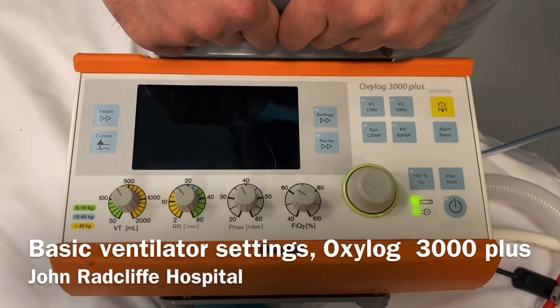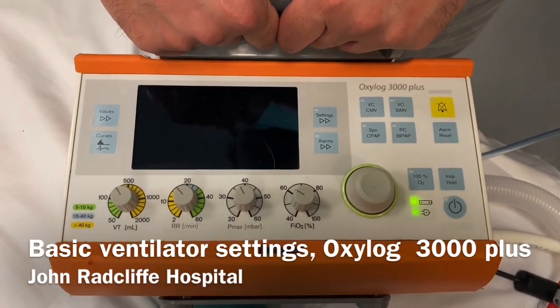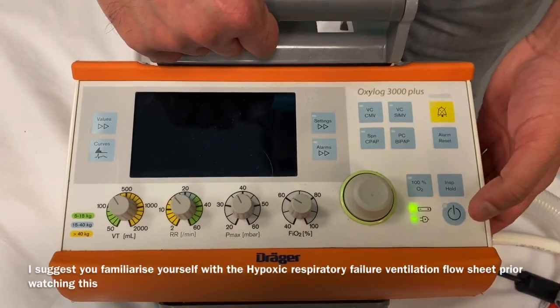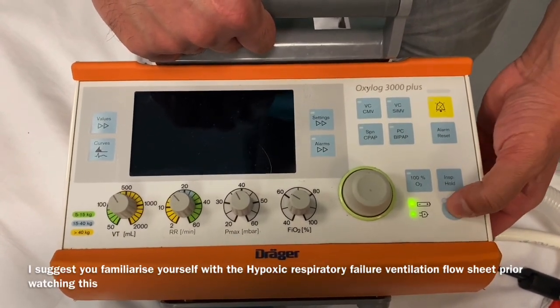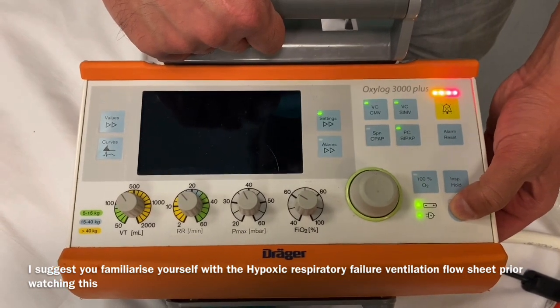This is a video to demonstrate the basic settings of the Oxylog 3000 and how to change them. First of all, switch the ventilator on by pressing the on button and holding.